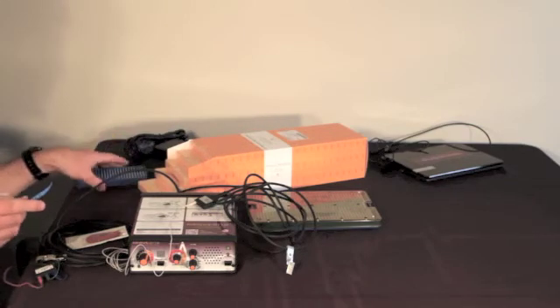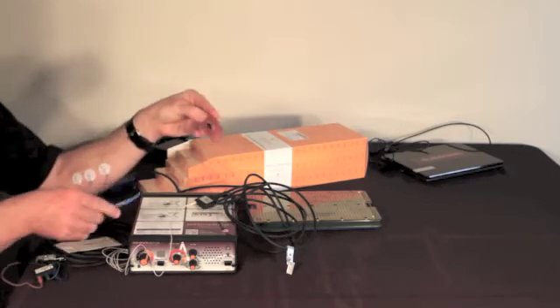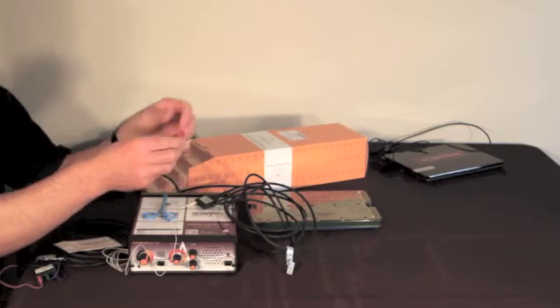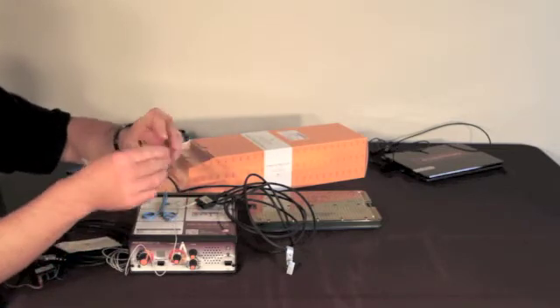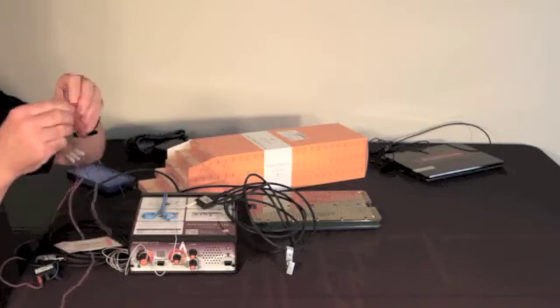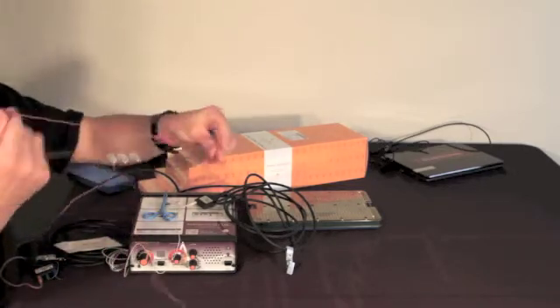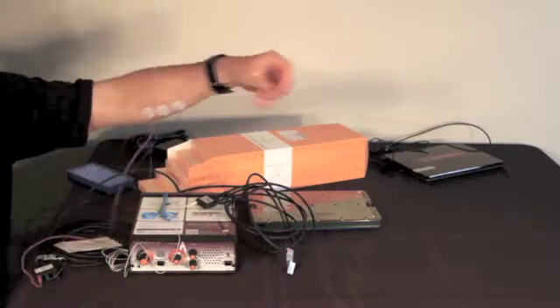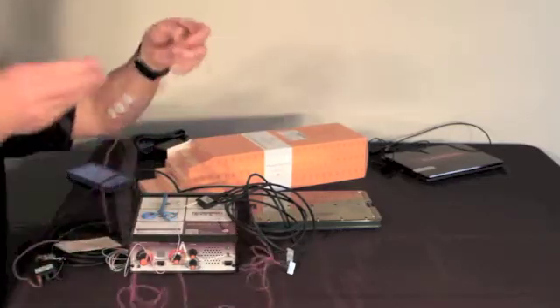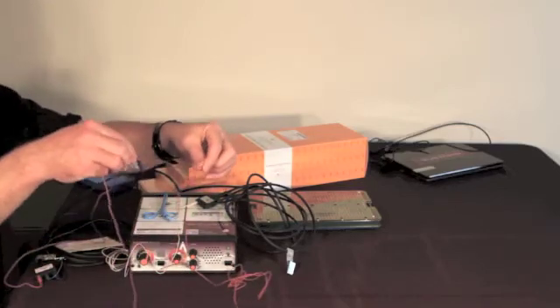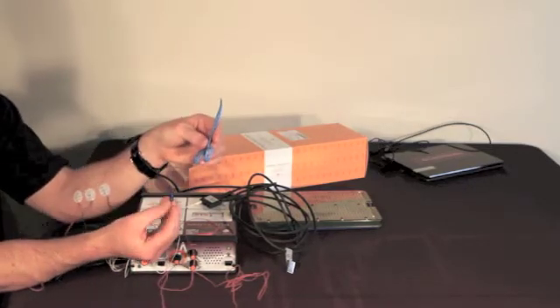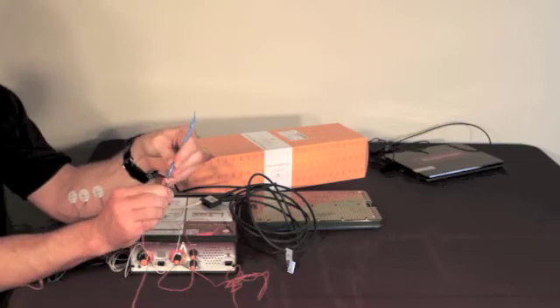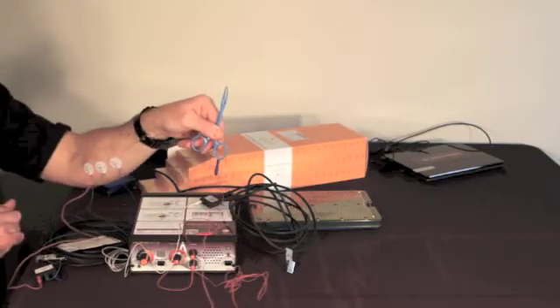So with all that done, going back to the surgery setup, the scrub tech will take this wire that's on their scrub table and I caution them to not just pull on it but to make sure they unwrap it the first couple of times. What you need to remind the scrub tech is that the blue end of the wire goes to the blue instrument. This remains sterile. This is used by the surgeon with a forceful twisting motion that will fit snugly on the post of the instrument.